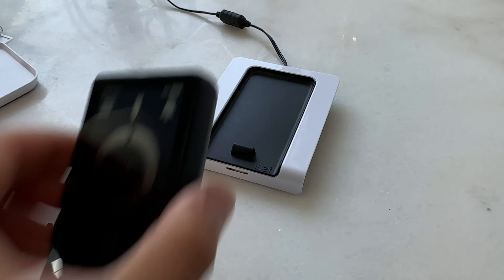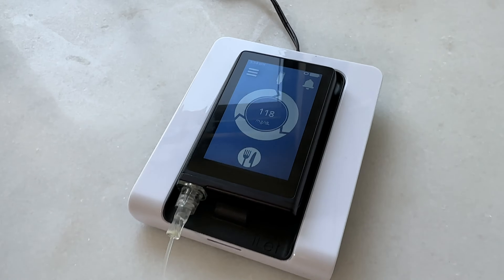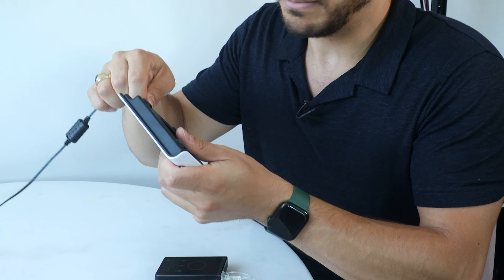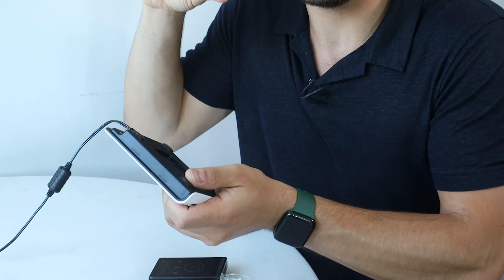Now let's talk about this charger. This is the charger for the pump — it's technically a Qi charger, spelled Q-I, which is the same type of wireless charger used for most electronics like iPhones and Android phones. Beta Bionics recommends that the ILET only be charged on this one, which I think is some regulation with the FDA, but I tried it and it also charges on my iPhone charger by my bed. The charger is pretty bulky and charges via micro USB, which to me is outdated technology — we should only be charging things with USB-C.